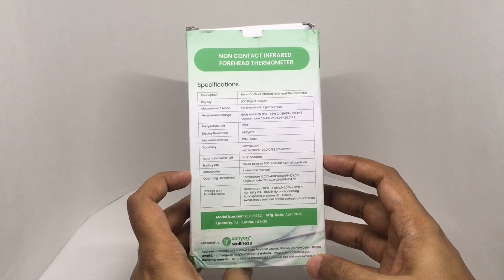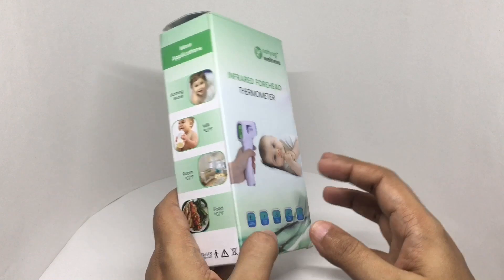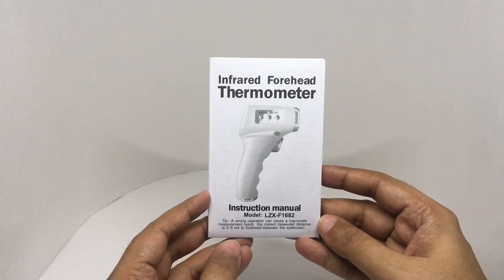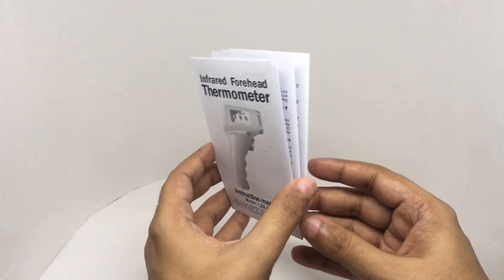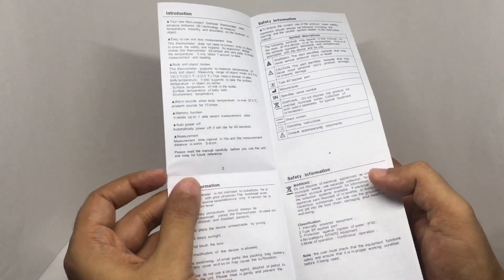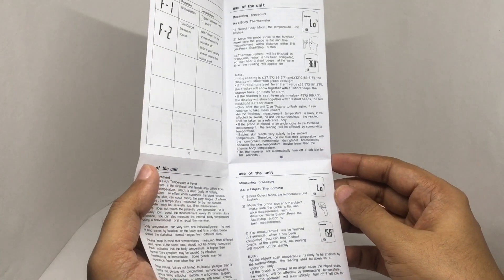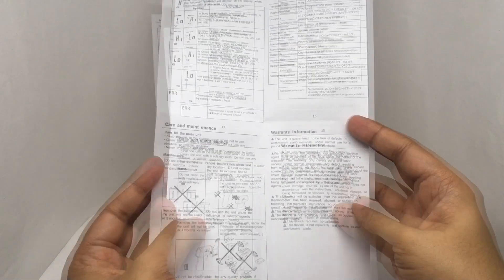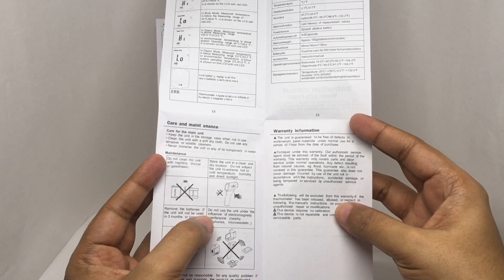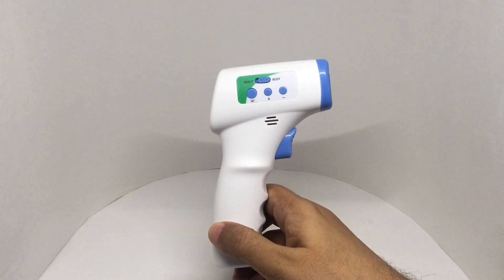In normal conditions, these are some of the things you can measure. It comes with an instruction manual and is pretty straightforward to use. Note that cell phones and microwaves can interfere with it, as it is affected by electromagnetic interference, so try to avoid that.